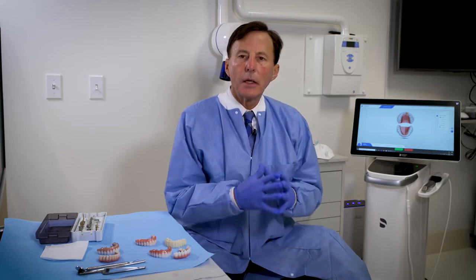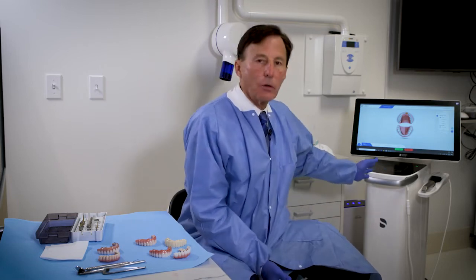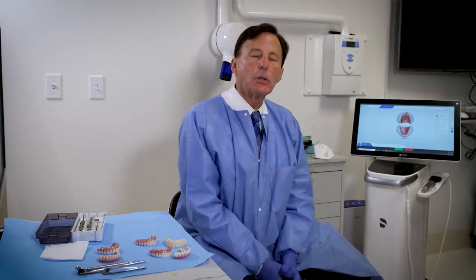The very next morning you come in and we screw in these printed teeth, which almost look as good as the real teeth. You take those home for a few days, and then we adjust them until we have a perfect bite. Then we use the Sirona scanner — the most accurate digital scanner in the world — to scan in that perfected bite and overlay it with our original design.